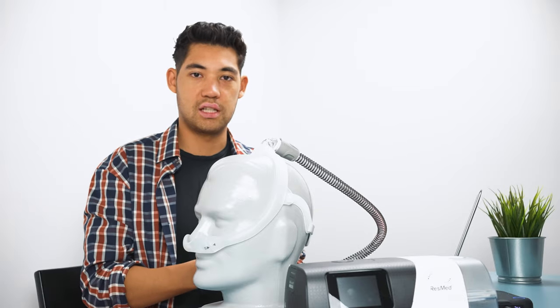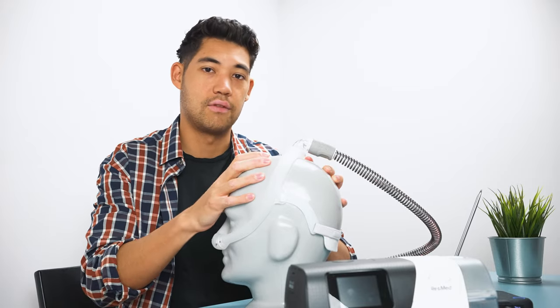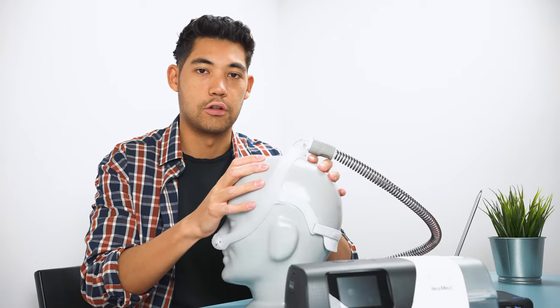So if this is your first time using CPAP therapy, if this is like your first mask you've ever tried or something like that, try changing a mask, try seeing if a different mask leaks less. That could definitely be a big factor on your mask leaks.